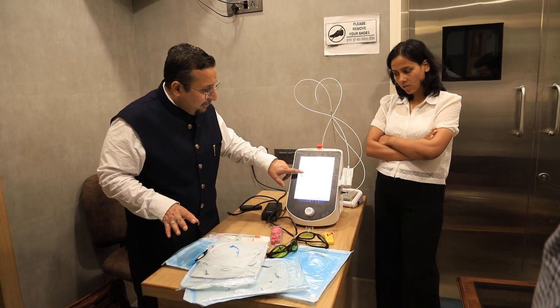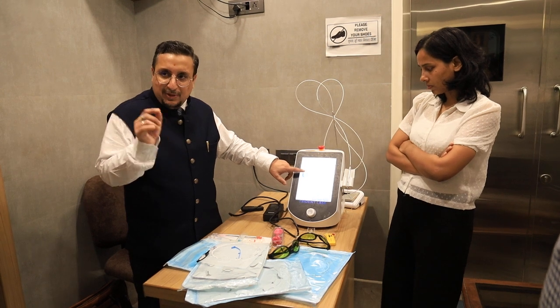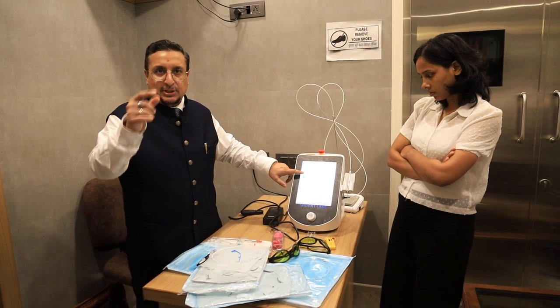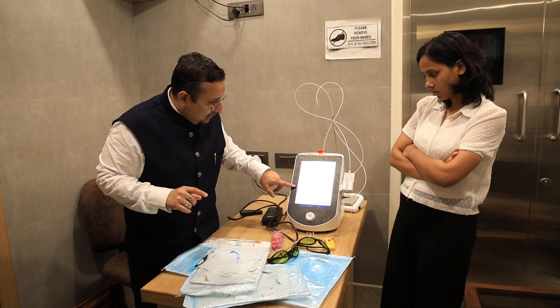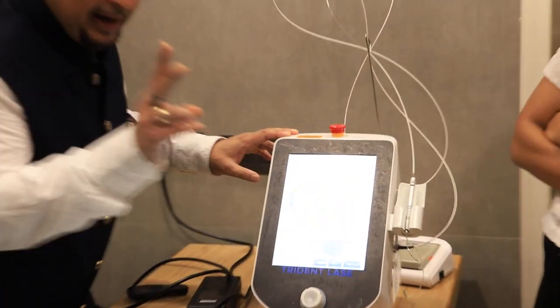So this is the peak power wattage. I will tell you how much watt and which surgery will be done at which wattage in the lectures. These are the settings and this is the button for this.